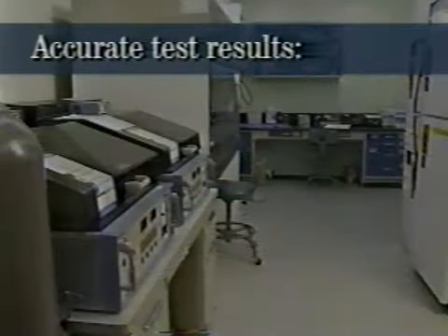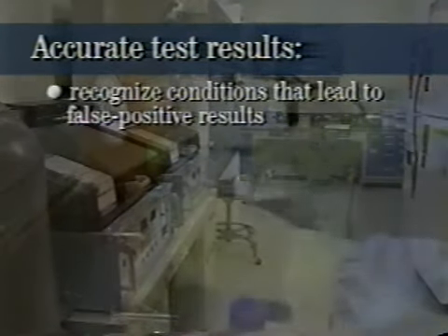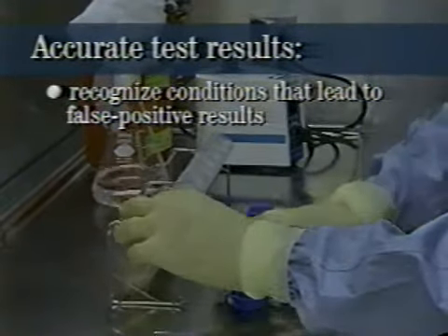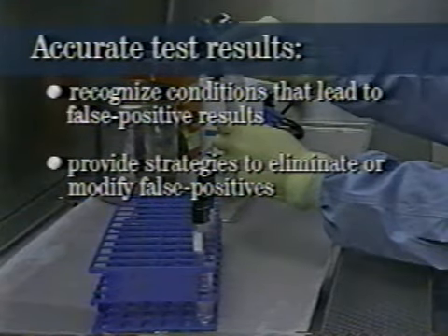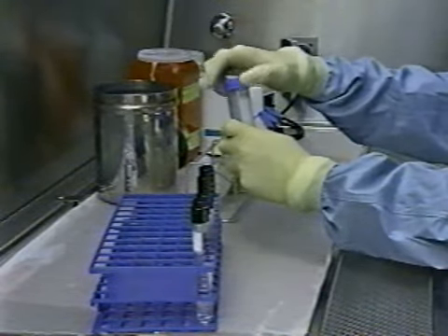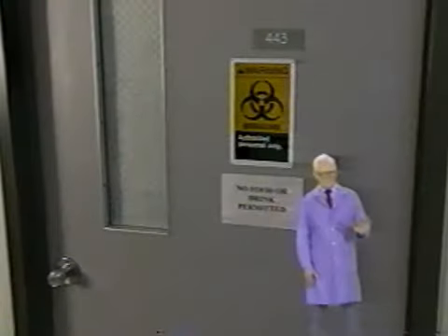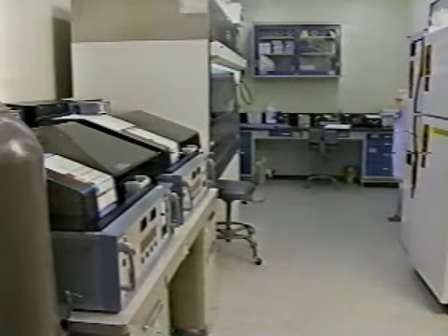This program focuses on helping you achieve accurate test results in mycobacteriology by showing you how to recognize conditions that might lead to false positive tests and providing you with strategies to eliminate or modify them. To help us distinguish between effective and ineffective lab practices, I'd like to introduce George. He will be helping us throughout our program. So, George, what do we need to do?